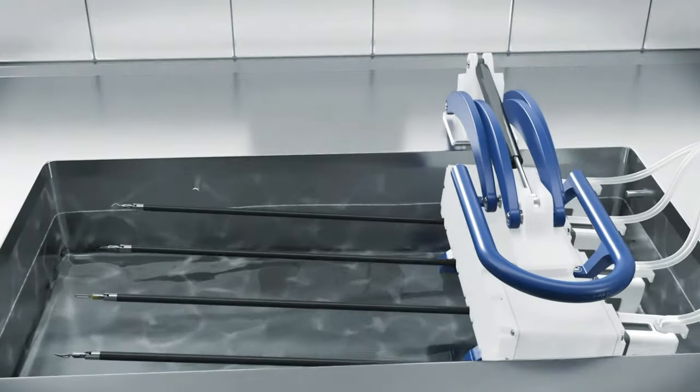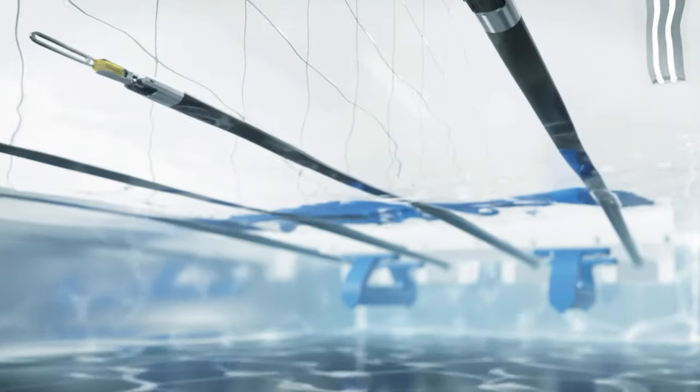Due to its universal applicability and high material compatibility, ultrasonic cleaning can be used for most medical instruments in the practice or clinic.